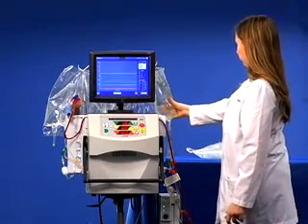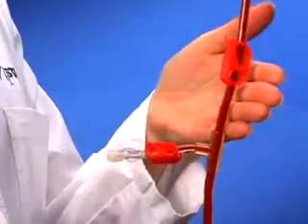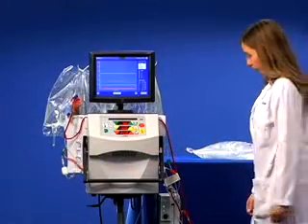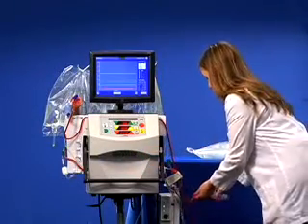When flushing is complete, release the arterial or access patient line, that red clamp, and reclamp the saline line and the saline T.